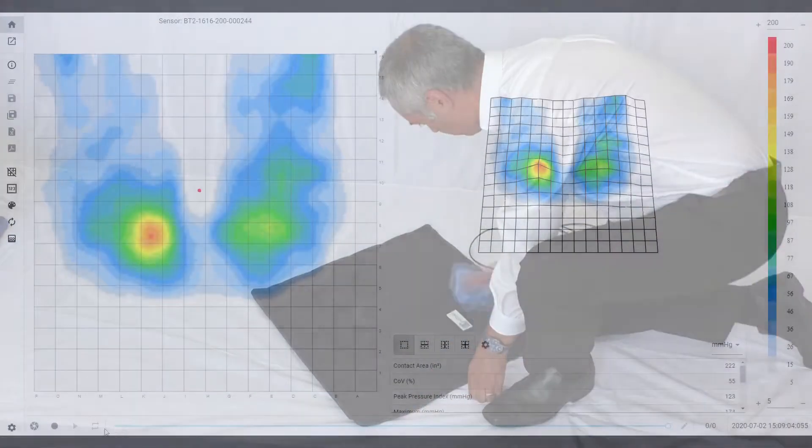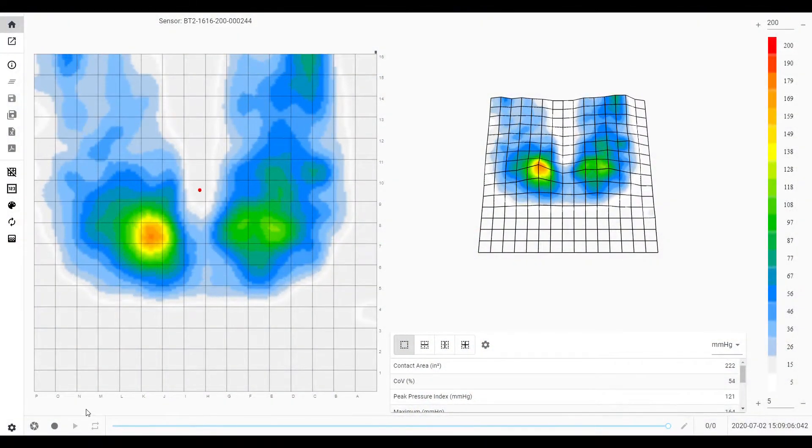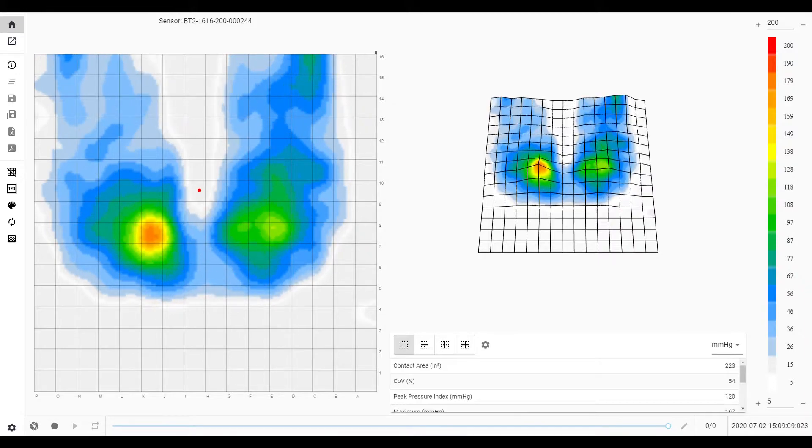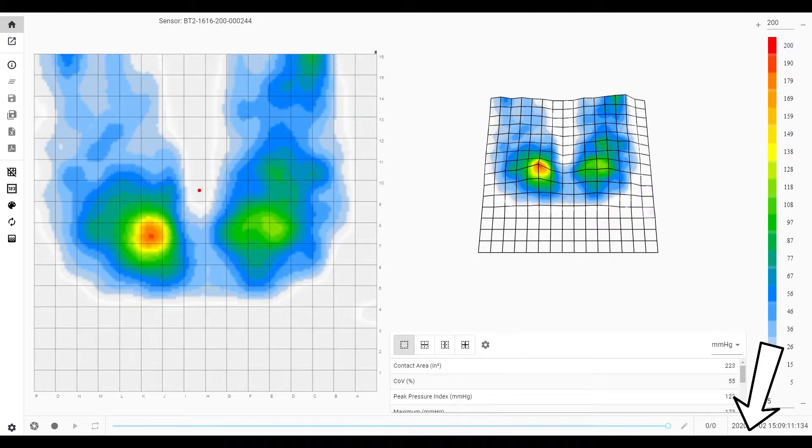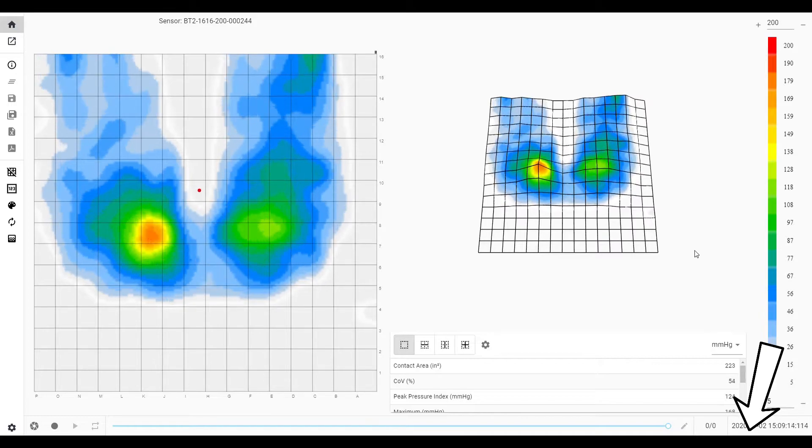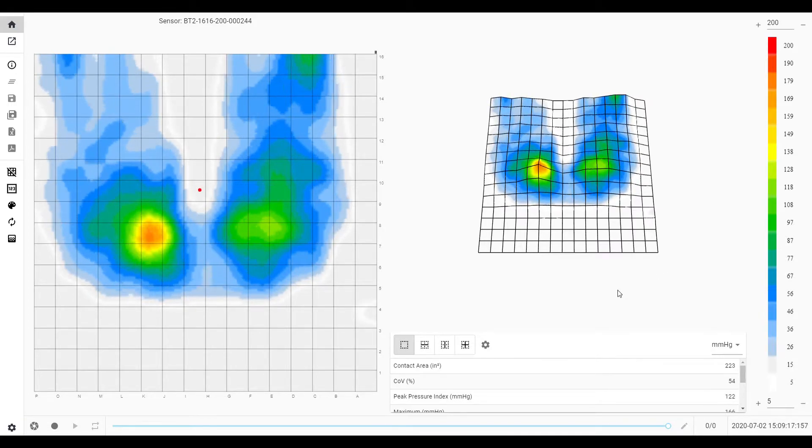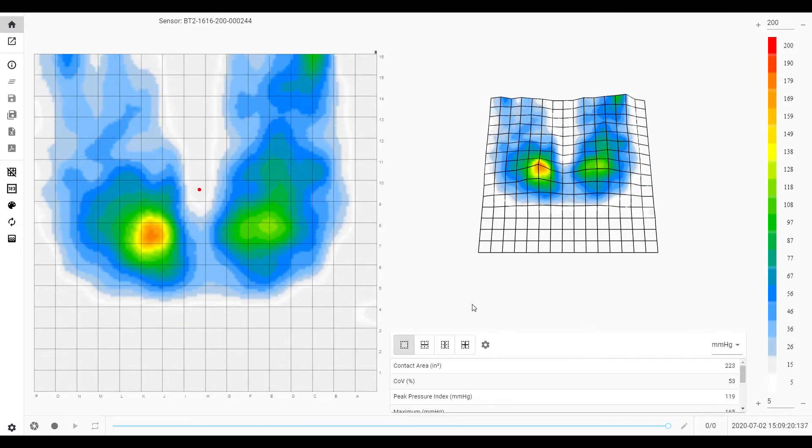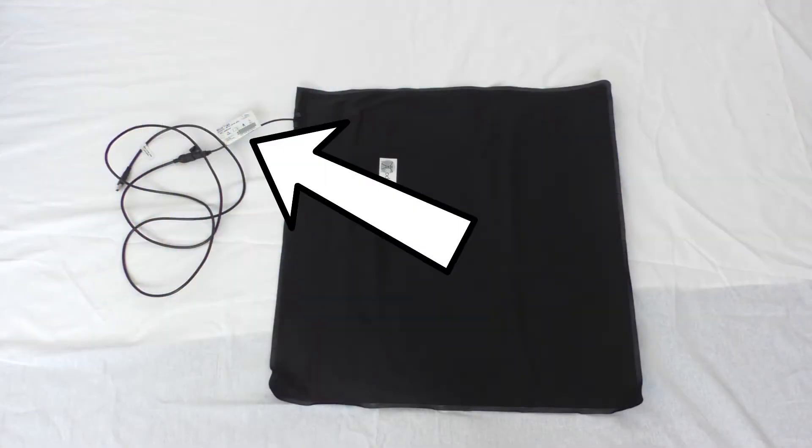Connecting your BodyTrak system. When you first connect the mat, go into your Wi-Fi settings at the bottom right-hand side of the screen. Click on the make and model of the mat. This will enable you to connect the mat to the software. You will find the required password on the label of the lead of the mat.